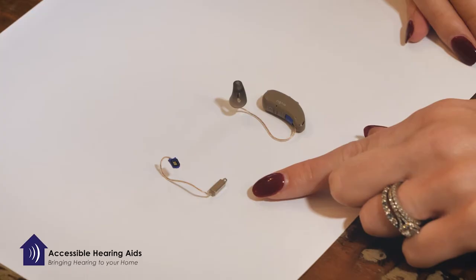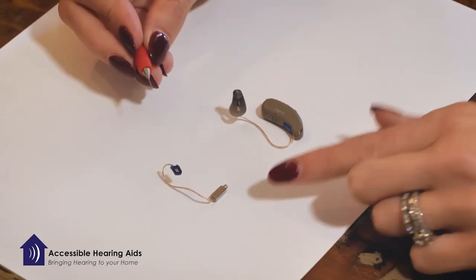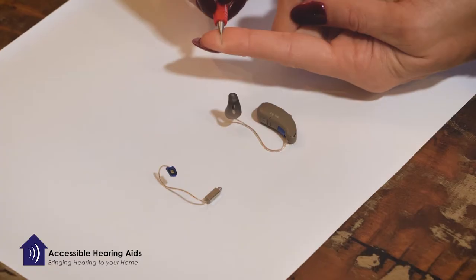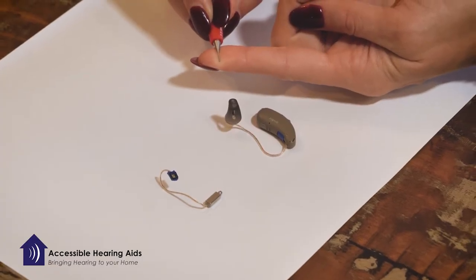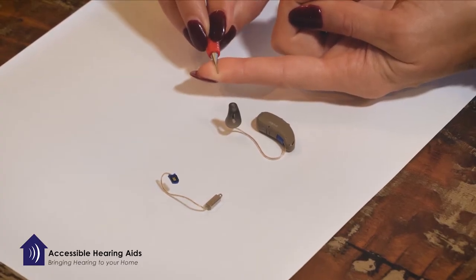This is not something that you want to do unless instructed to do so by Dr. Griffith. You will need something that is small and sharp — most people use a safety pin, or a very small nail or needle.